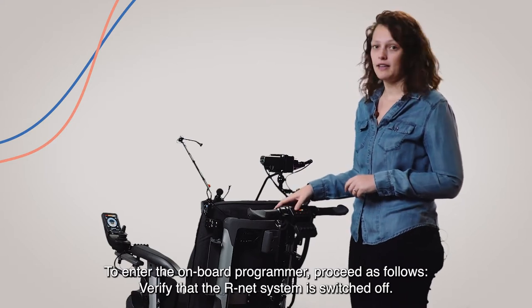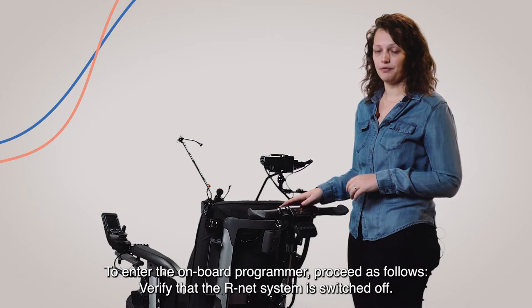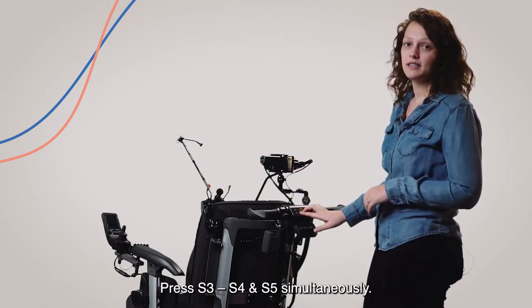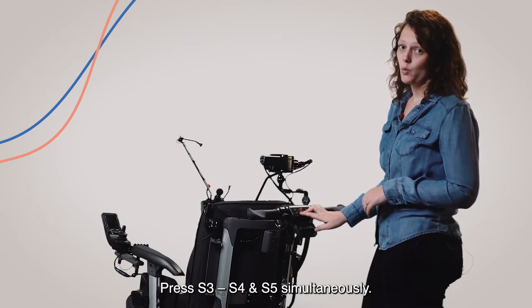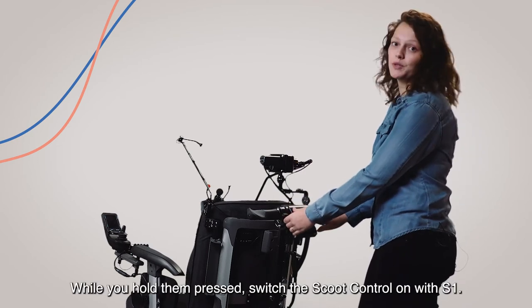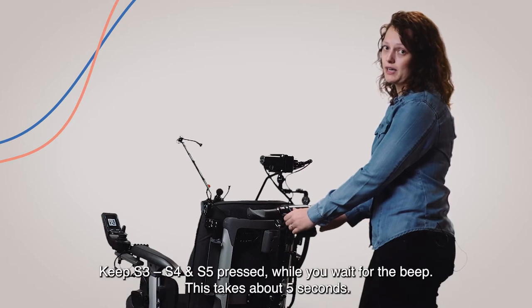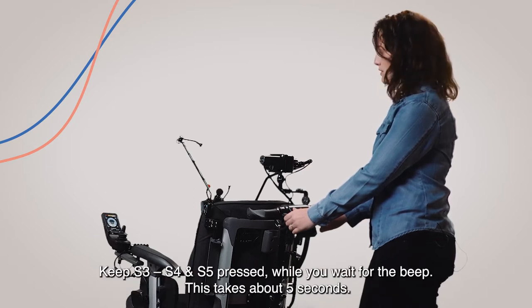Verify that the R-Net system is switched off. Press S3, S4 and S5 simultaneously. While you hold them pressed, switch the scoot control on with S1. Keep S3, S4 and S5 pressed while you wait for the beep.